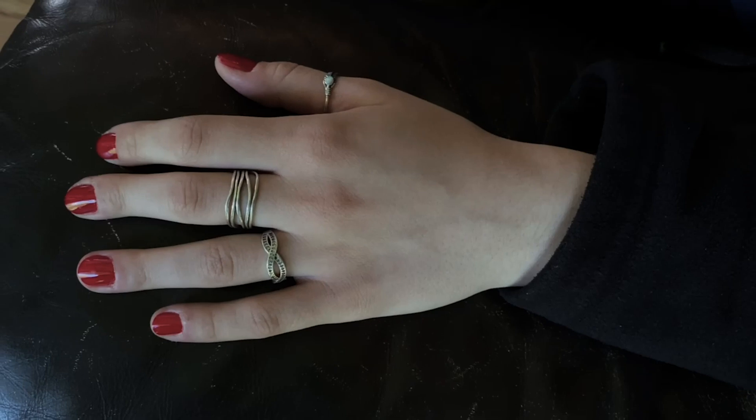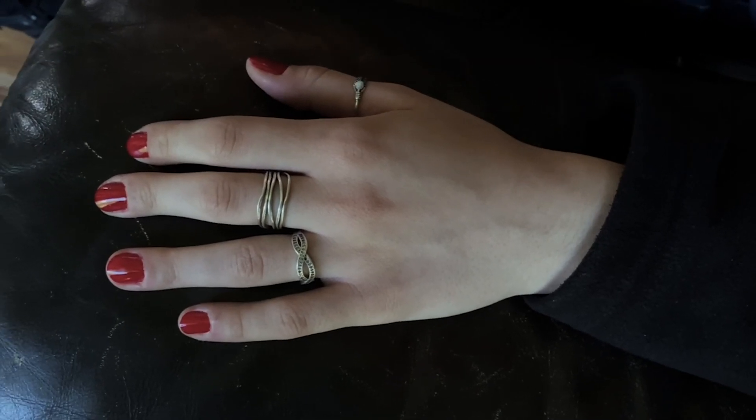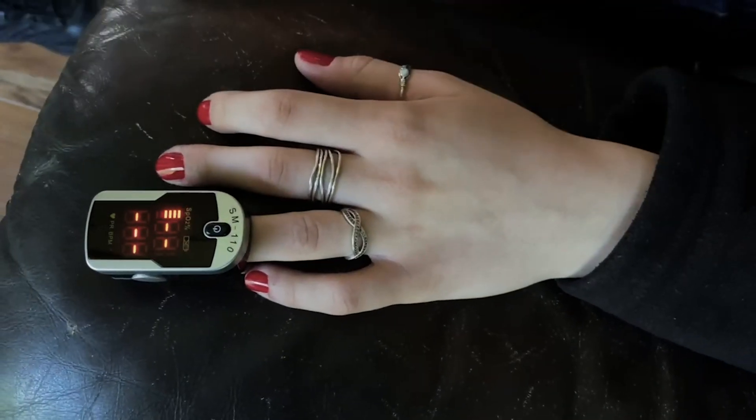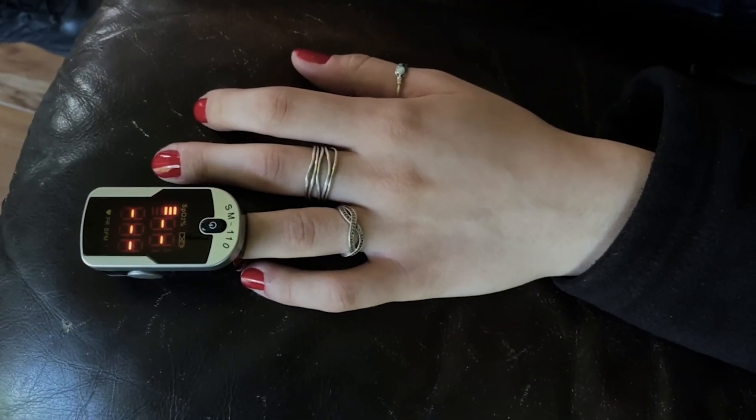Remember we are using a red and an infrared light, so any other forms of red in that light can give us a false reading. Red fingernail polish — or any fingernail polish, pink, red, anything like that — can give a distorted reading. It's best to place the pulse ox on fingers without fingernail polish. A lot of EMTs carry fingernail polish remover to remove it and get a more accurate reading.